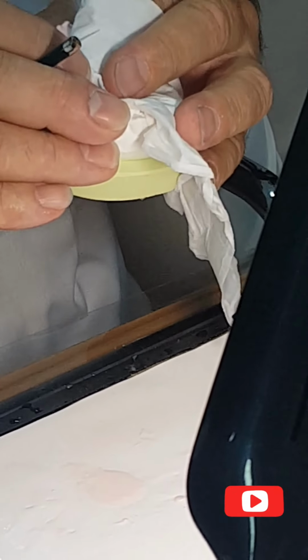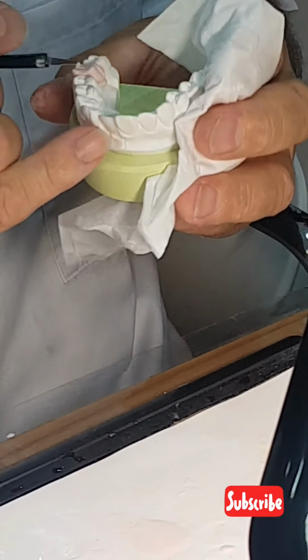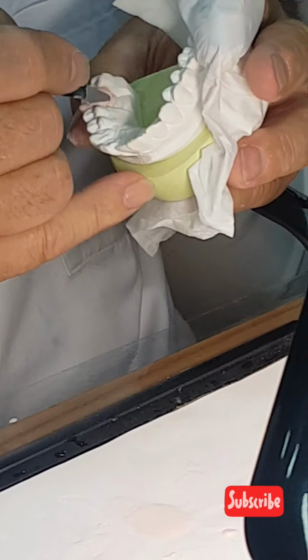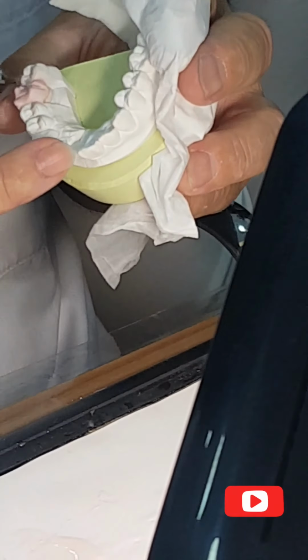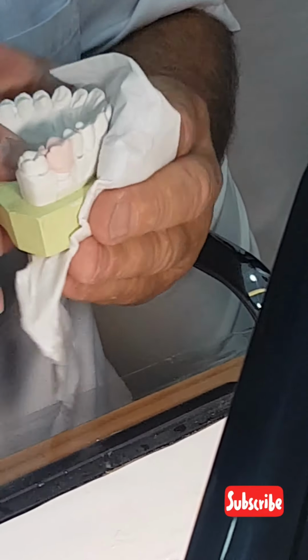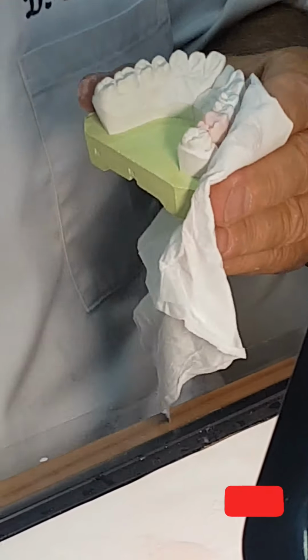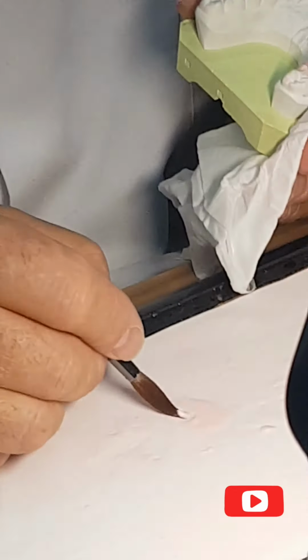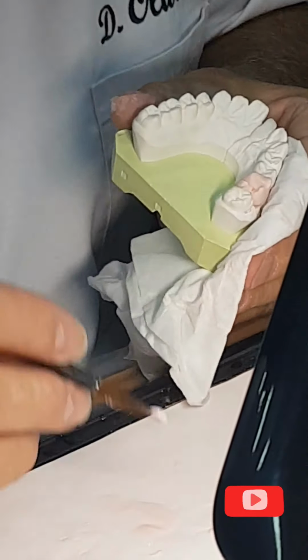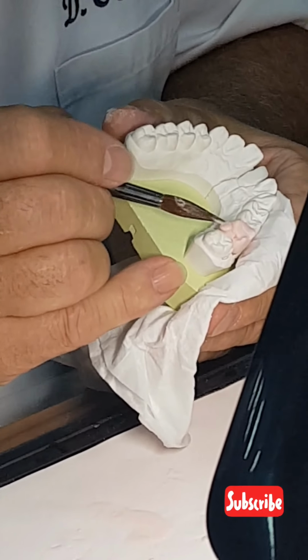I do not draw grooves in the dentine. You have seen in the picture, there is absolutely no groove in the dentine of the natural tooth. Grooves are only in enamel. So if I spend time drawing grooves in my dentine, it's wrong and it's lost time. And I'm going to overcoat that premolar mamelon with the molar one.